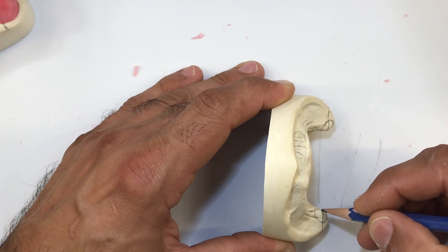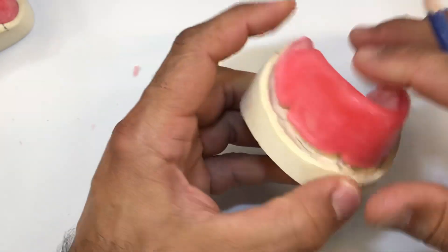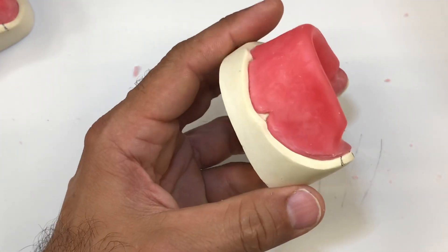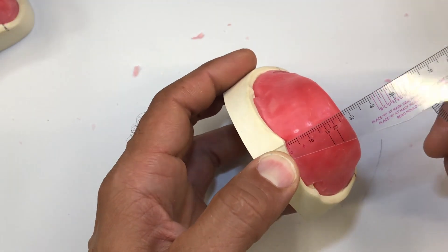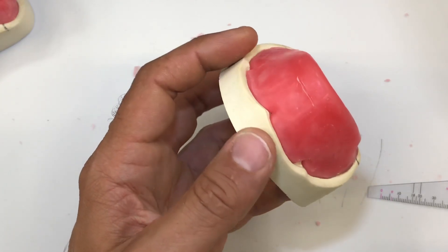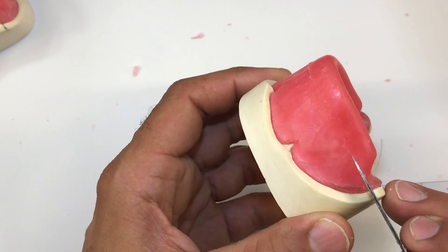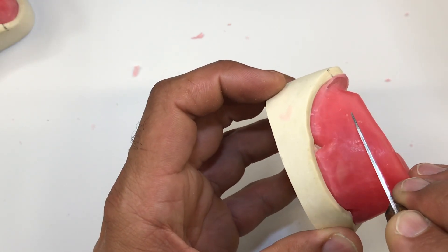So we have a line like that. I'm going to reorient the lower bite block back onto the MasterCast — everything should fit there nicely with no rocking. Now I can take my ruler and measure 18 millimeters from the top of the land area over the frenal attachment, and just make a little mark there. That's 18 millimeters. Then I'm going to start at the marking back here and rotate the model toward that target.